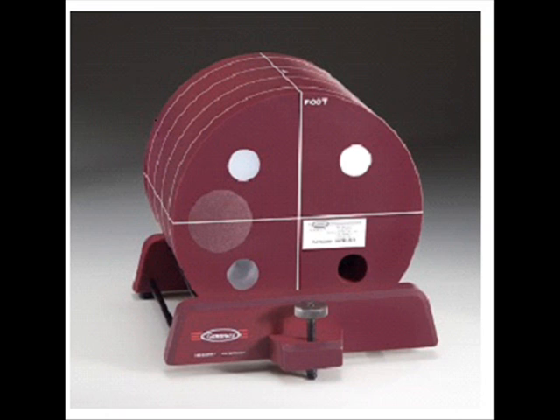There are external alignment markings scribed and painted white on each module to allow centering of the phantom in the axial, coronal, and sagittal directions. There are also head, foot, and top markings on the phantom to assist with alignment.